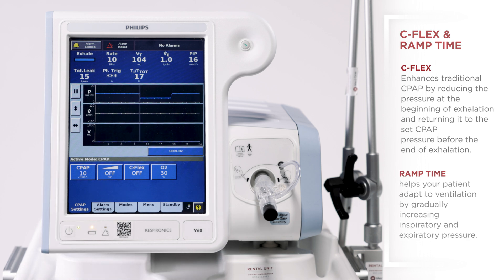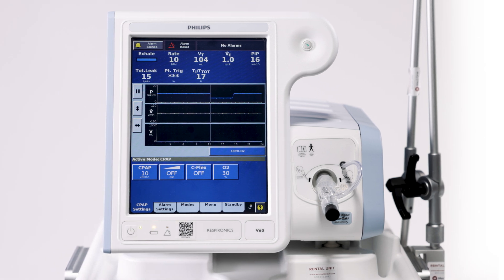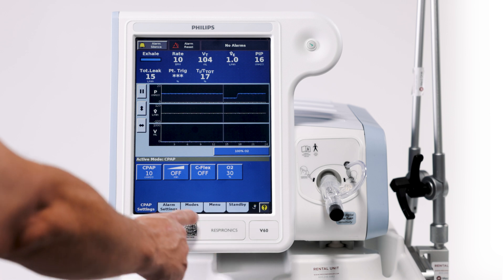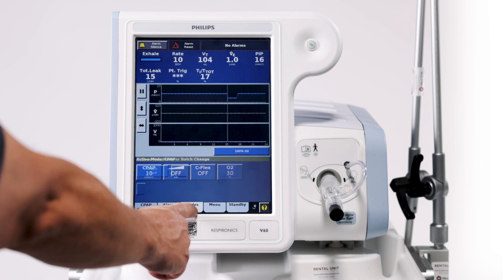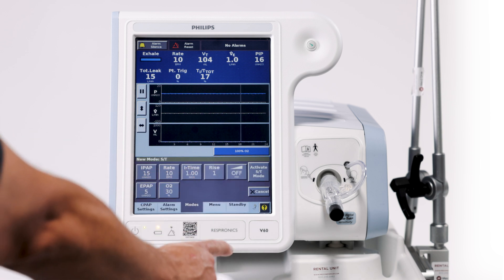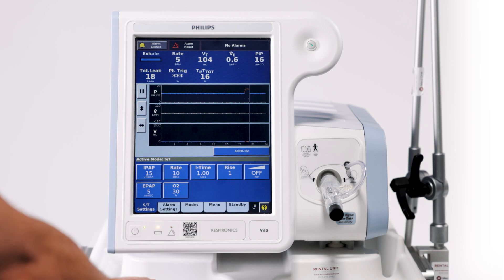If we want to get the ventilator back into spontaneous timed mode, we'll go to modes. We select ST mode and activate new mode.